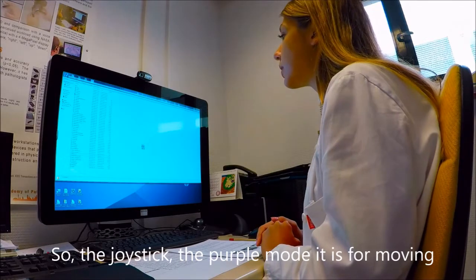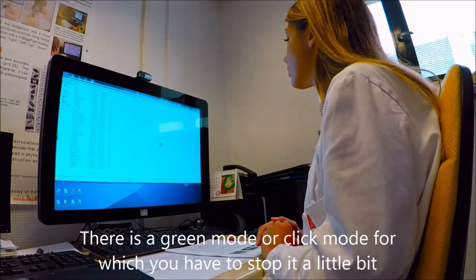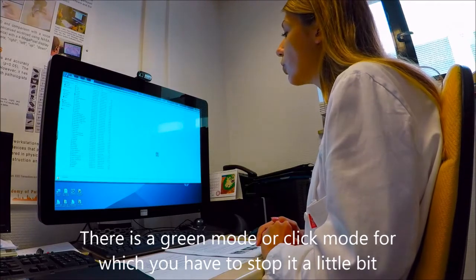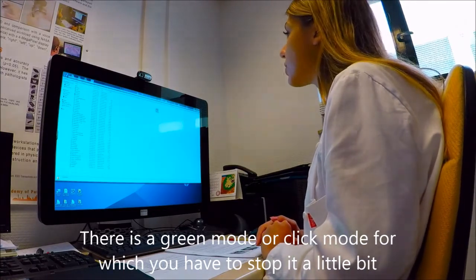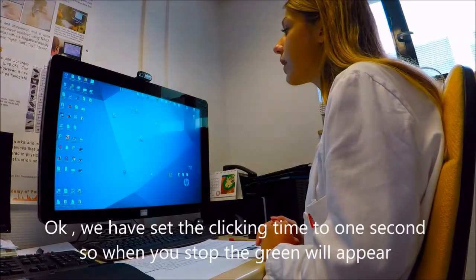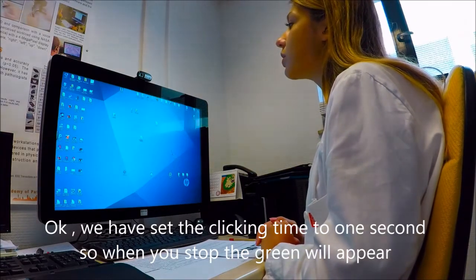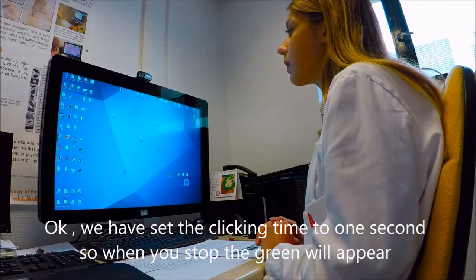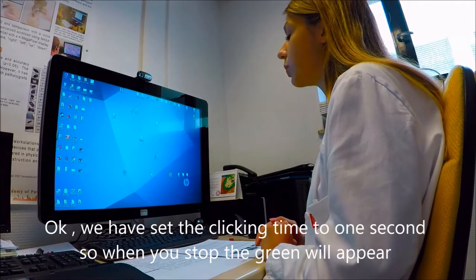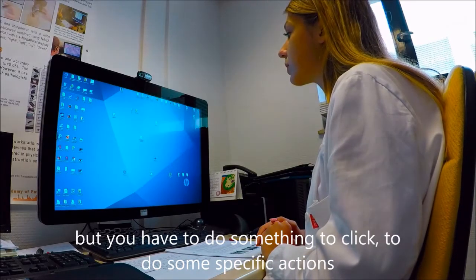So the joystick, the purple mode, it is for moving. There is another mode, green mode or a clicking mode, for which you have to stop for a little bit. Okay, we have set the clicking time to 1 second, so when you stop, the green color will appear. But you have to do something to click. You have to do some specific actions.